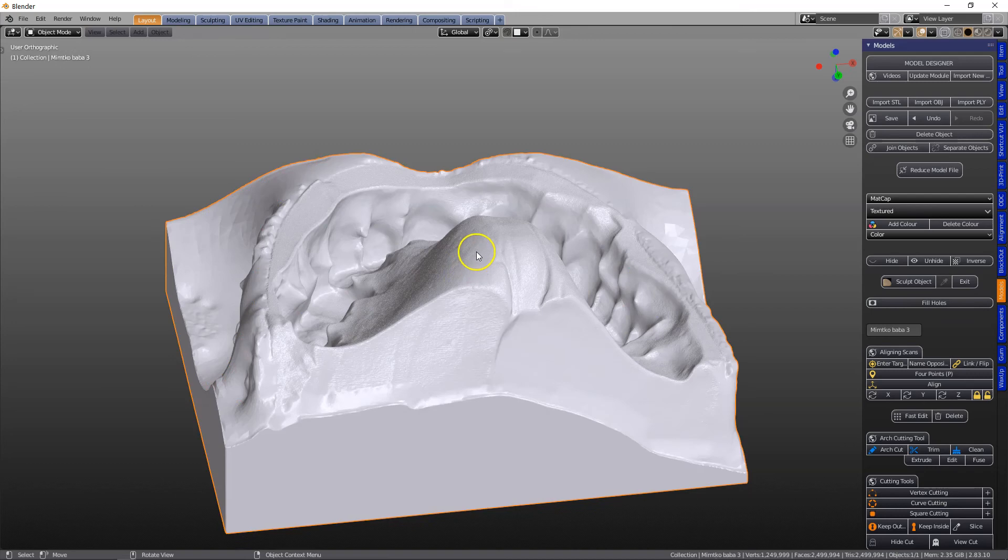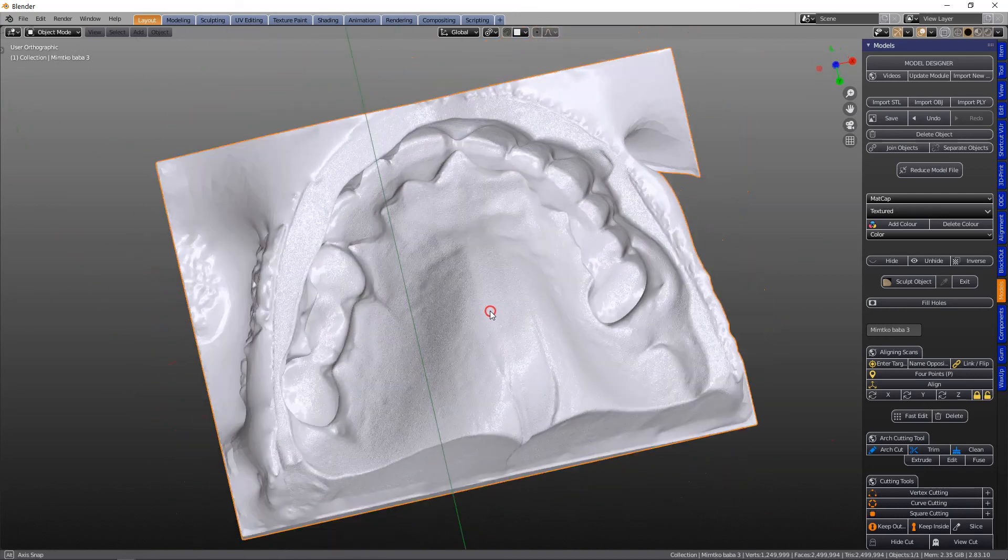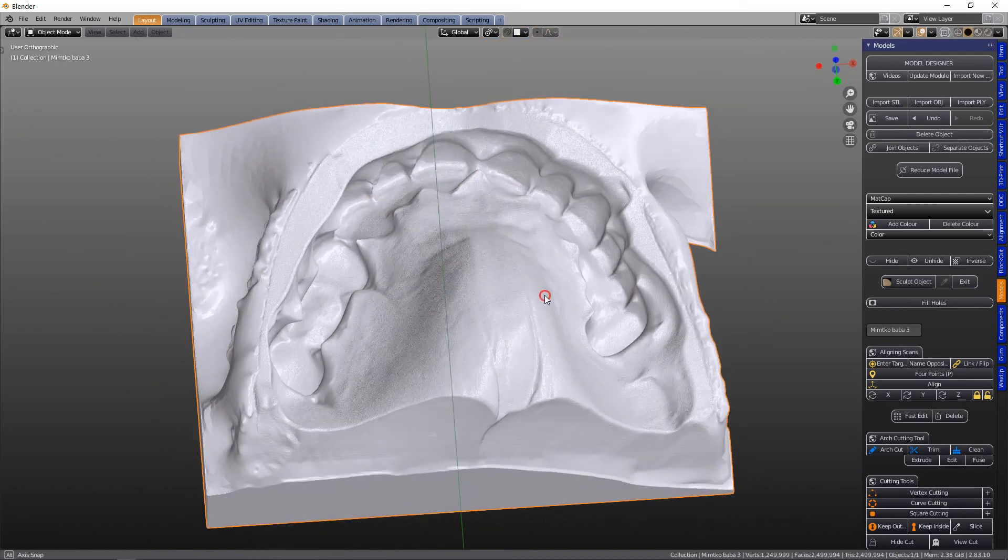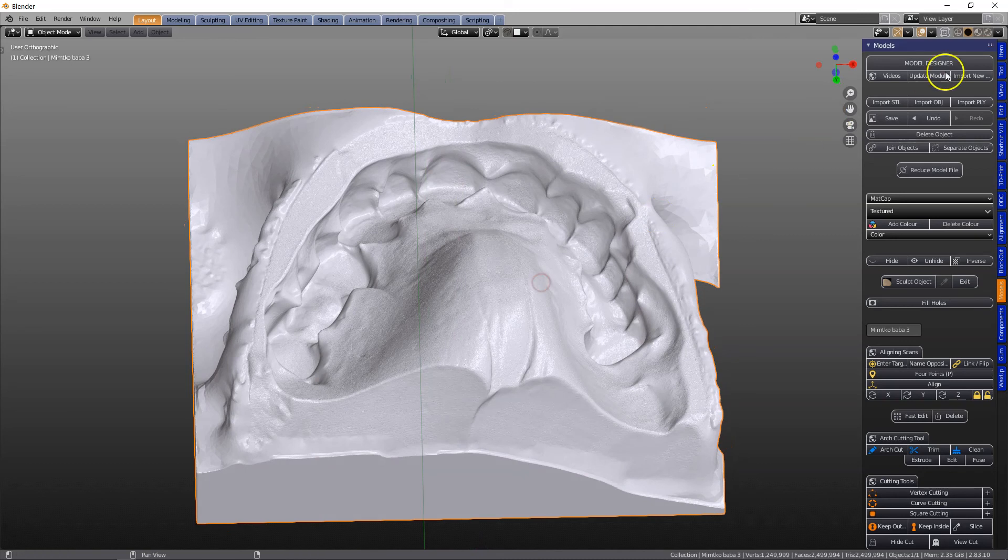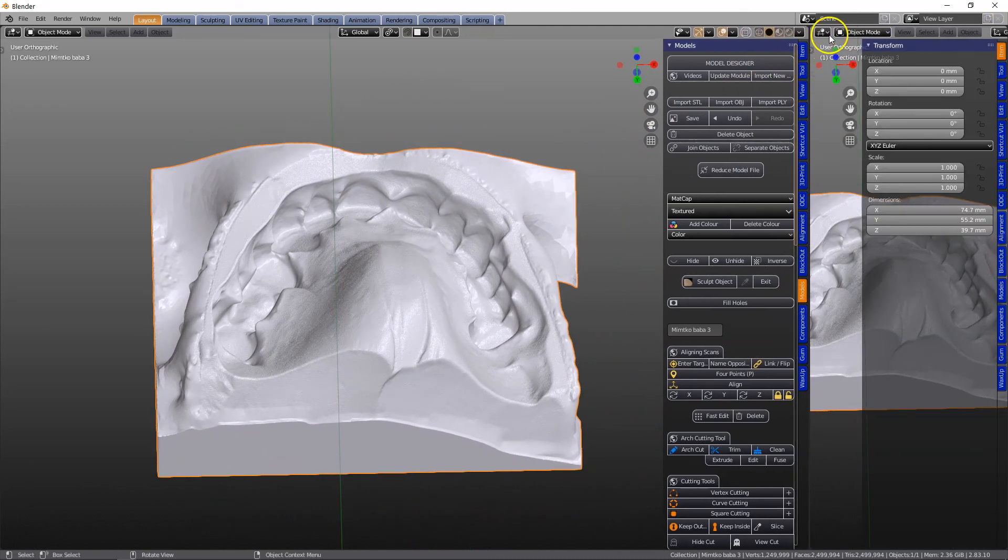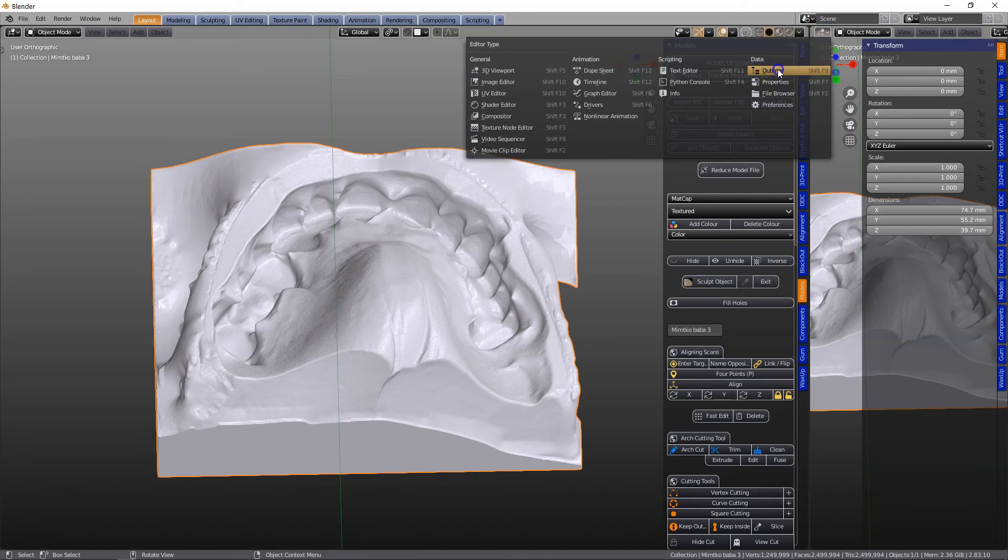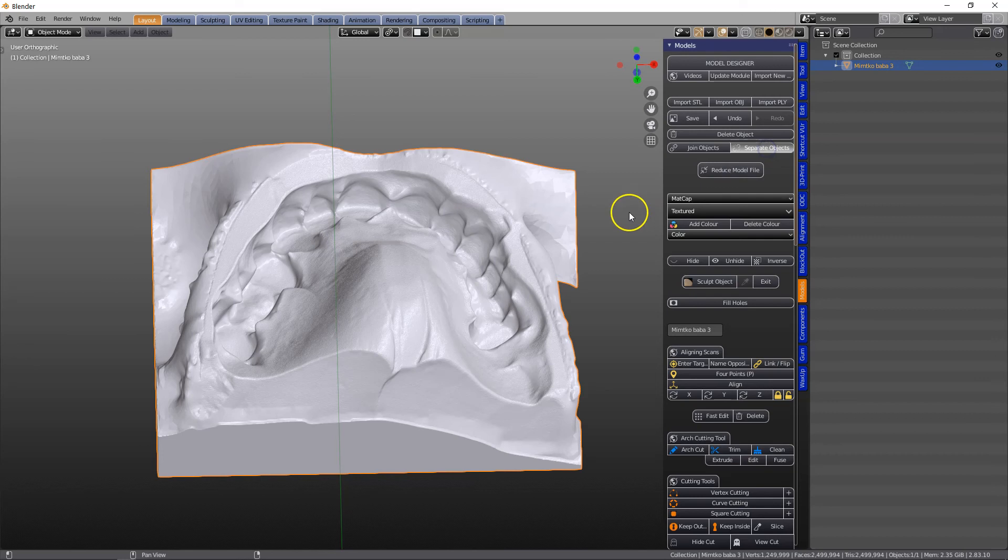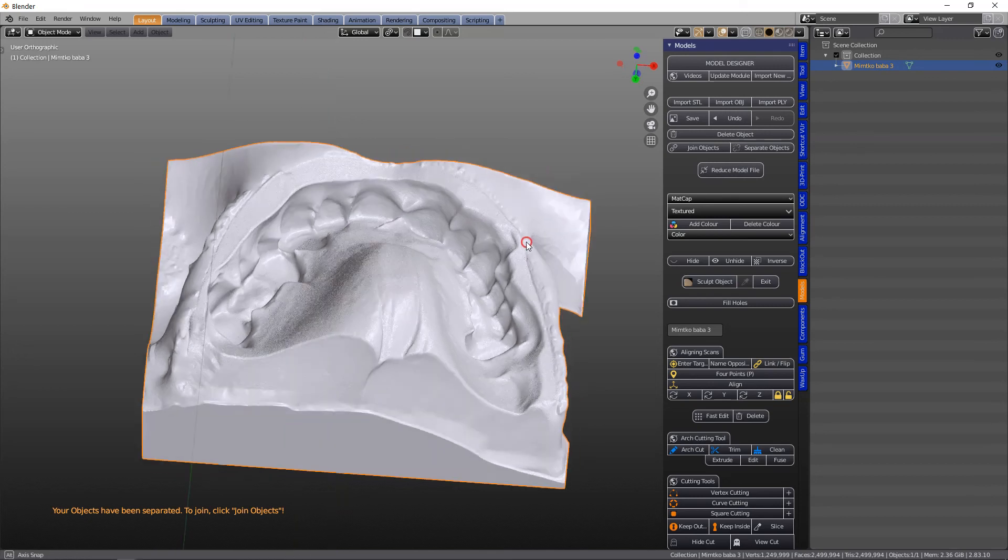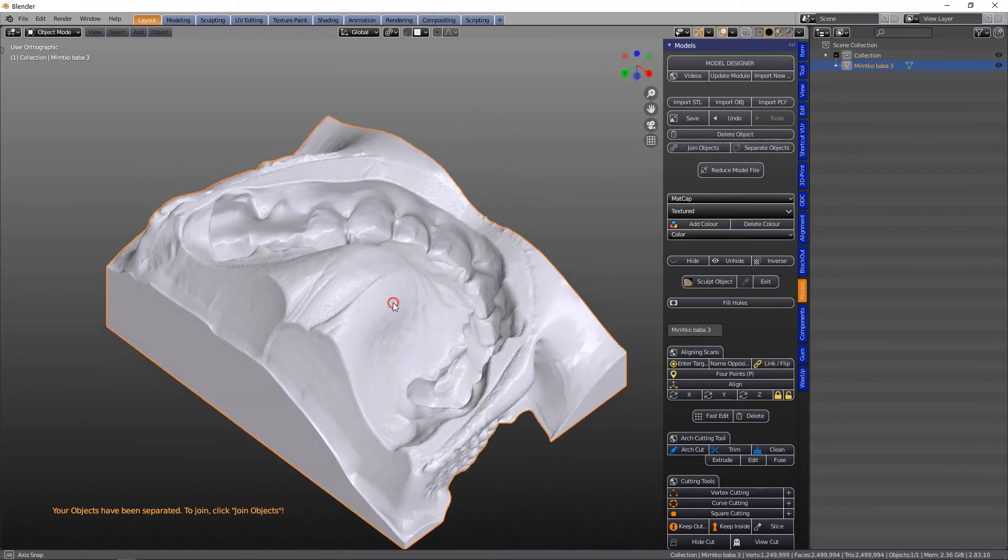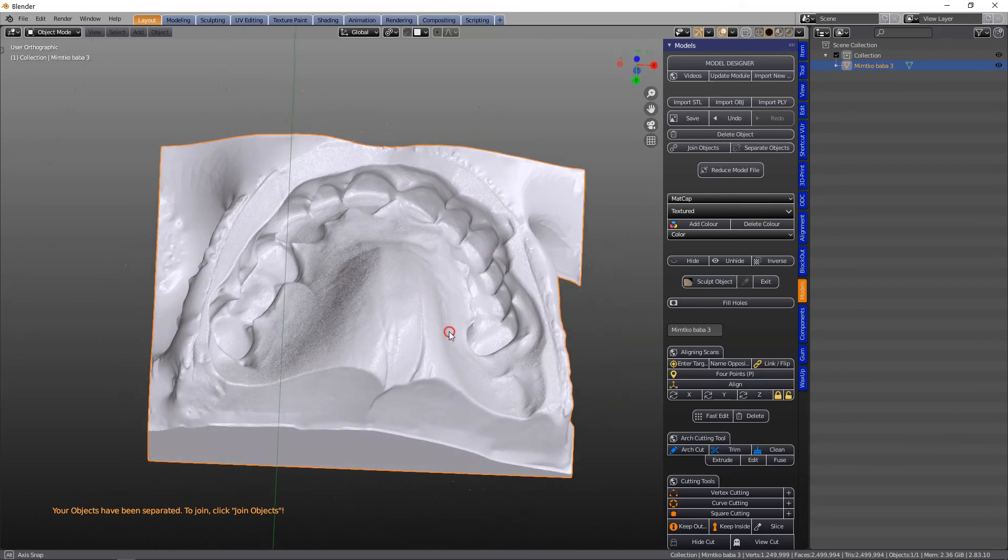The other thing that I've noticed is it's got like a shimmering effect, which tells me that maybe there are other objects inside of this object. So what I'm going to do is click on Separate and just see what happens. All right, so there's no other objects as far as I can see over here.